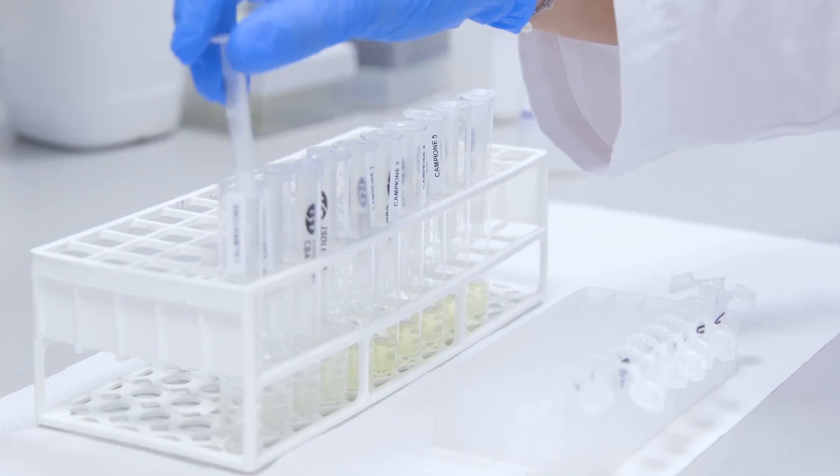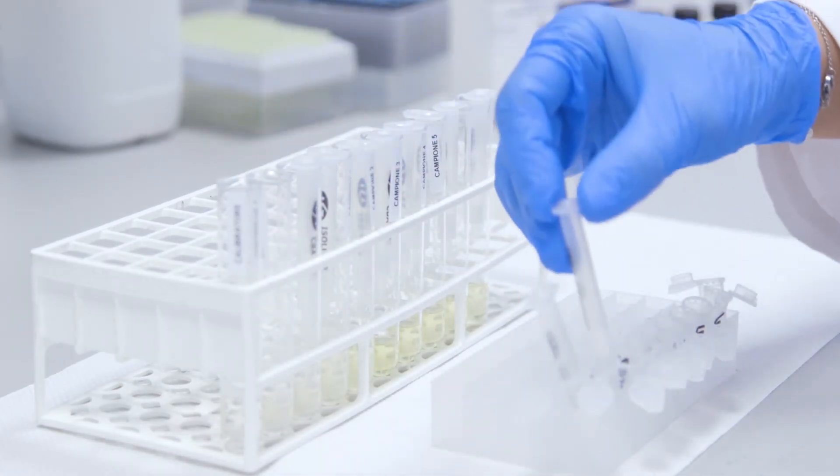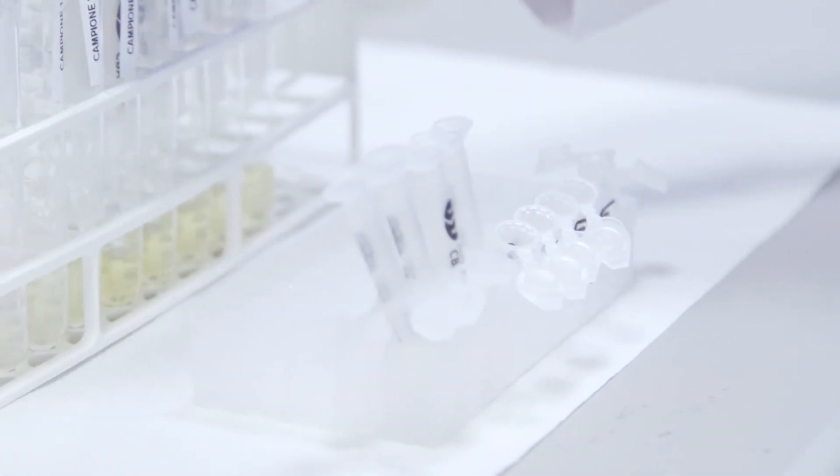Now let's move on to the elution and collection of the catecholamines from the SPE columns. Place the SPE column inside clean collection tubes.